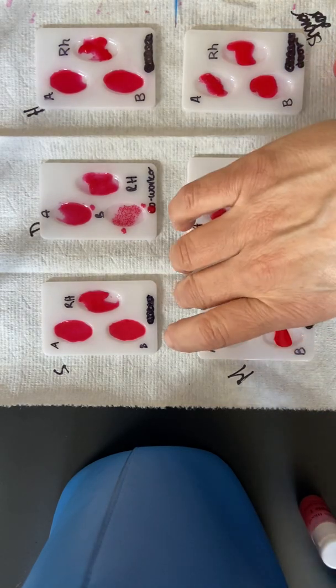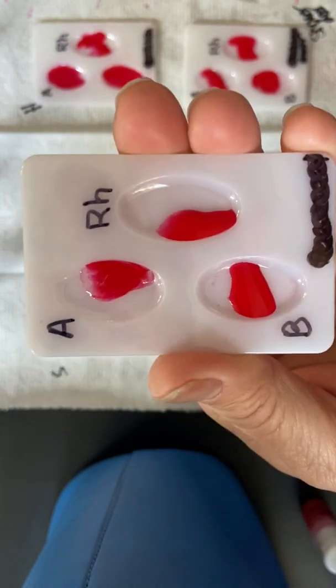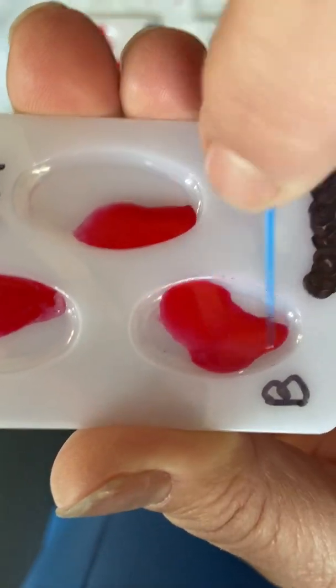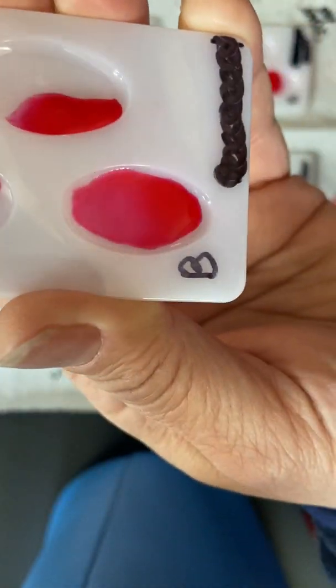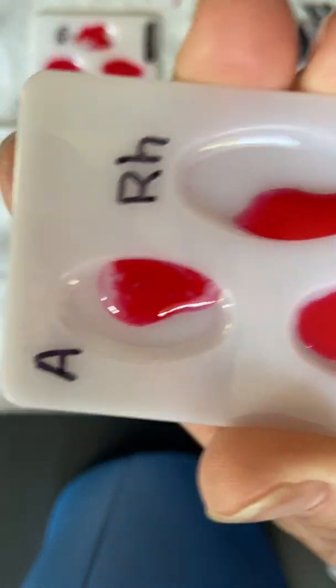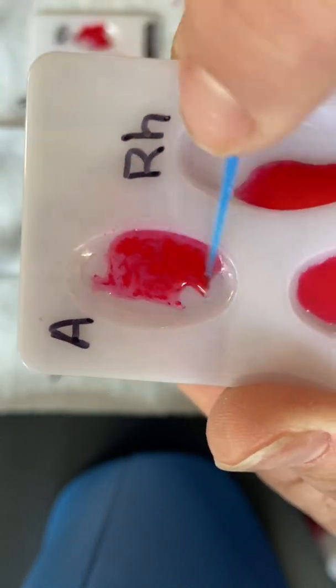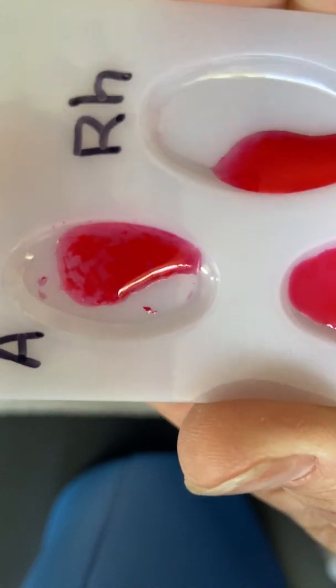Let's check on Mike. Bottom corner, bottom left corner. So Mike is, let's see, let's check the B. Anything in B? B looks pretty watery, not a lot of chunks there, right? Not much going on. Let's check the A. Oh, look what we found, right? So see how that looks different? See how there's definitely chunks in there? It clumps up, right?